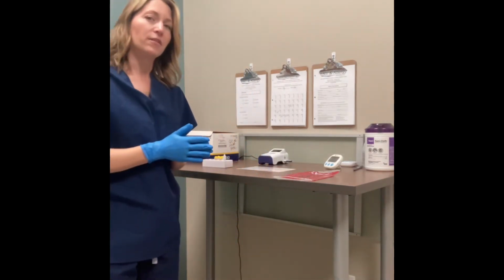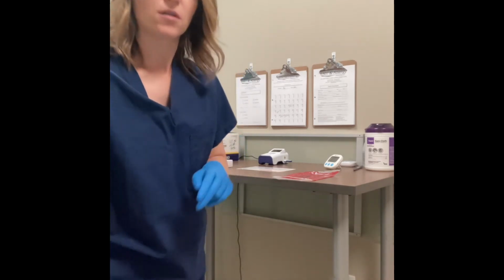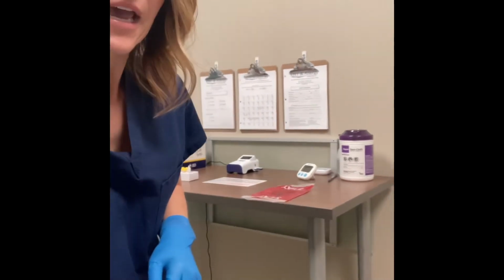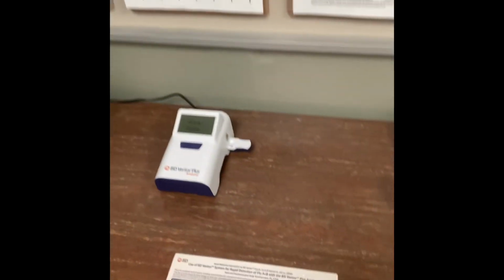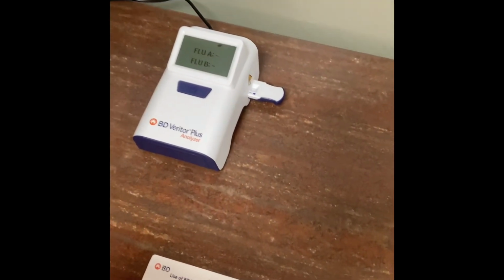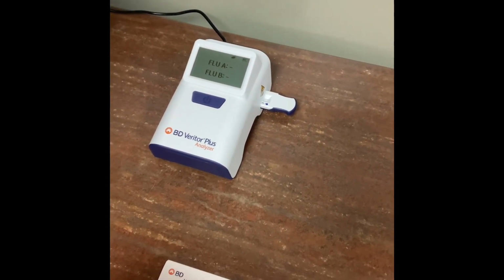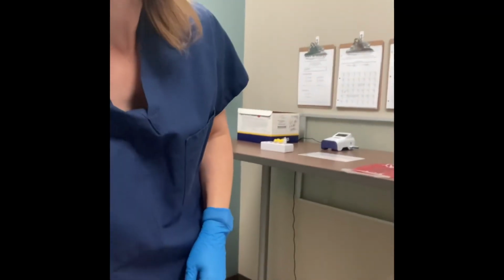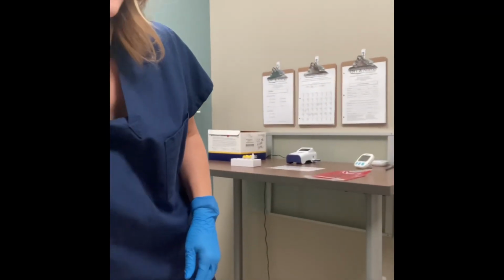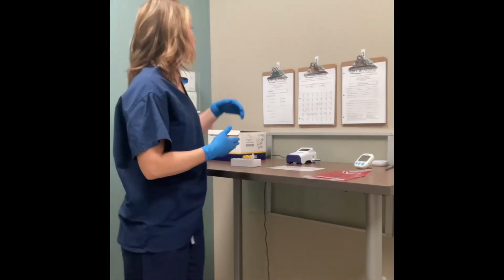Okay, we're back for the influenza result. So remember, influenza is going to have 2 results, an influenza A and an influenza B. So we're going to look at the analyzer here. And you'll notice it says influenza A negative and influenza B negative. Just be real cautious and double check that a couple times to make sure you're getting that correct when you're resulting that. Again, that result will stay up for minutes after the test is done, so you're in no hurry to come back here. That result will stay there.